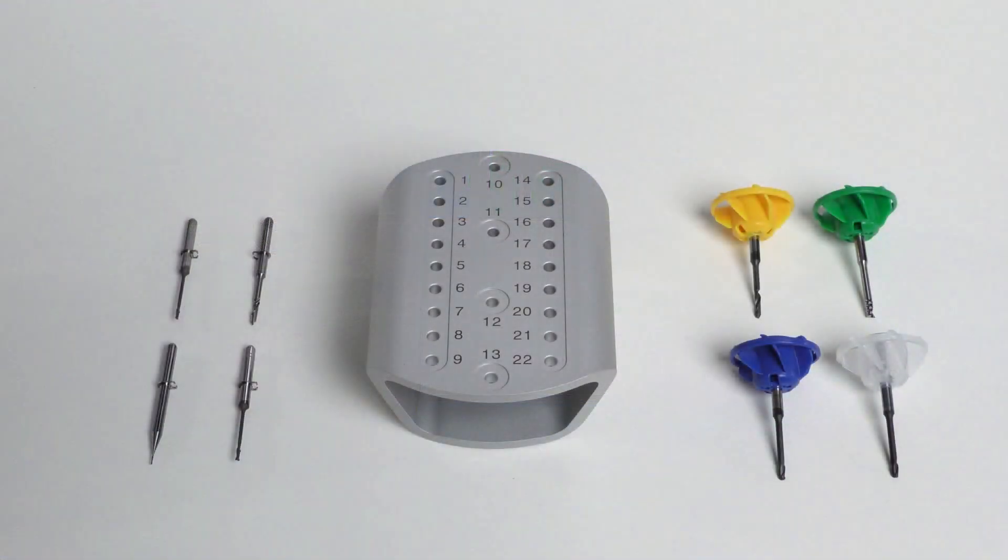If you have obtained the optional dry machining set, you can store your tools in the provided Administrative Tool Board or ATB for short.